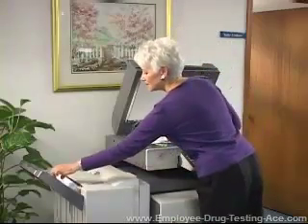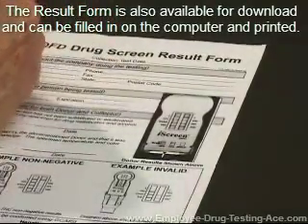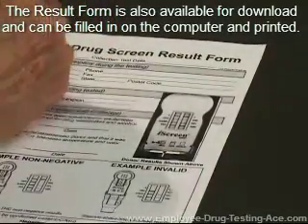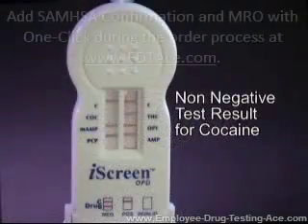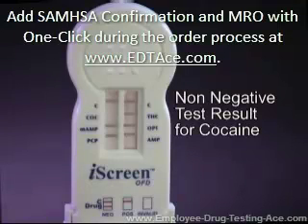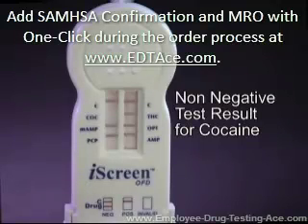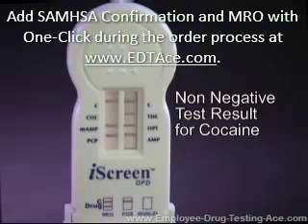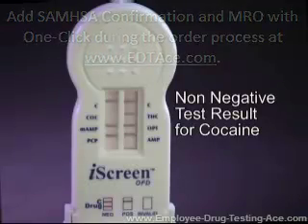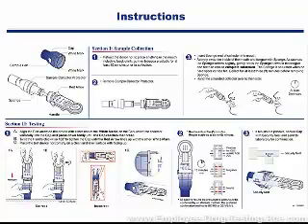Once a copy of the results has been made, simply fill out the photocopy by following the pre-printed instructions. Non-negative results should be handled in accordance with your company's drug-free workplace policy. The iScreen OFD has been designed to allow for the entire test device to be packaged and sent to the laboratory of your choosing for confirmation testing. It is important to remember that the iScreen OFD is only an initial screen, and all non-negative results should be confirmed by a laboratory. For reference, the iScreen OFD device comes with a step-by-step procedure card that details how to operate the device and interpret the results.